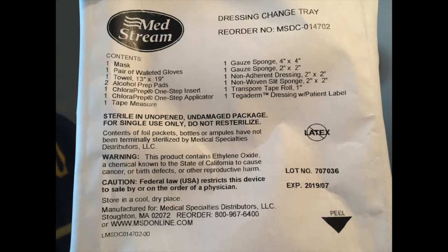You don't really need every little thing in there, but it's good to have just in case and for emergencies. This is also where you find your chloroprep stick — that's used when you're cleaning your patch site to make sure it's sterile, which is a very important thing.